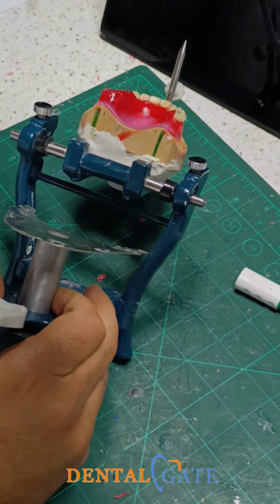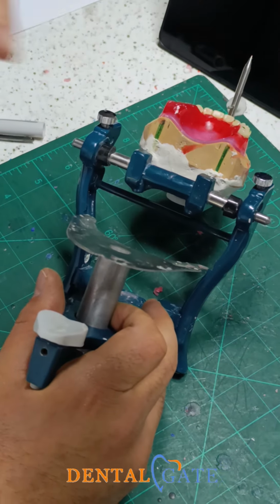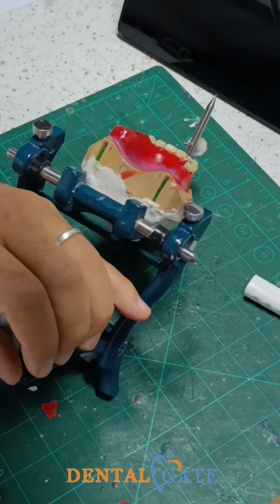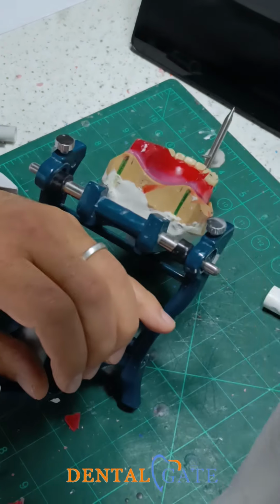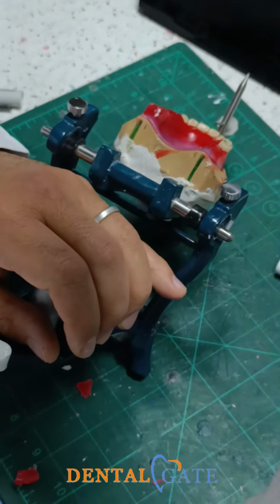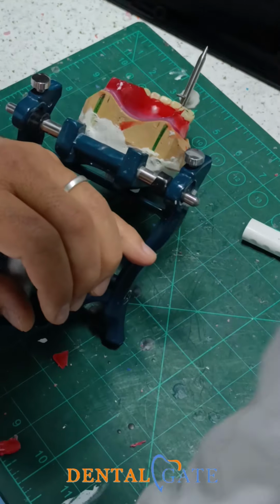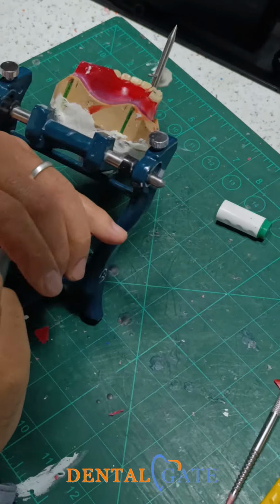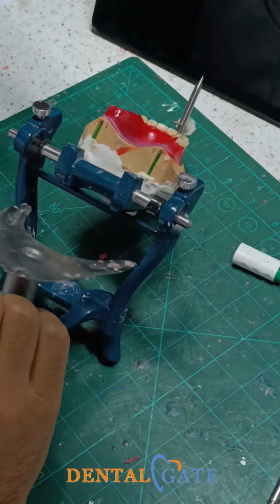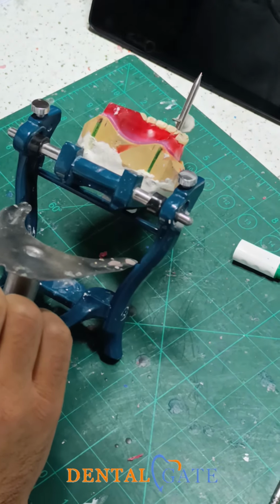Because when I make it within the table, I will follow this criteria: only one cusp. If you don't have this table, you can make it within the bite. Only the functional cusp should exceed the plane of the bite. All cusps are within the bite, only this cusp should be raised, prominent from the bite. You can do it without the table, but the table will assist your practice. The table is just a tool to perform these criteria, these principles.